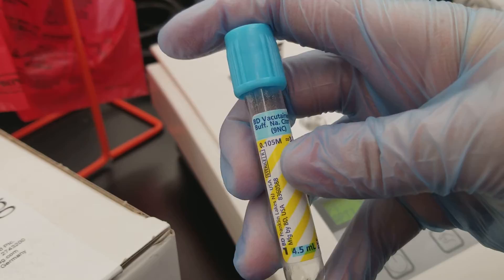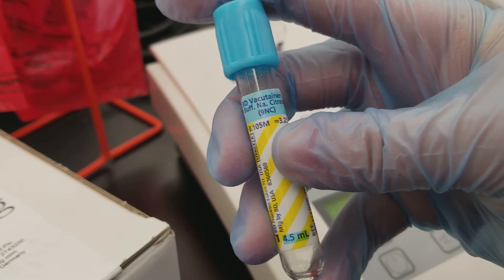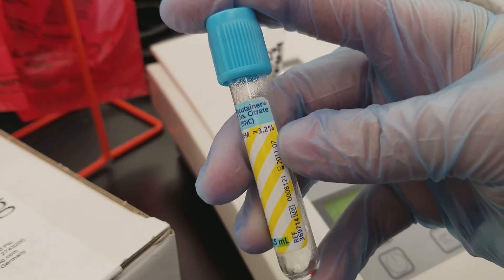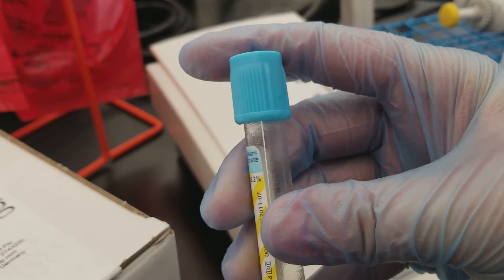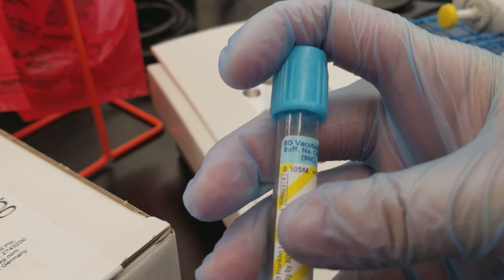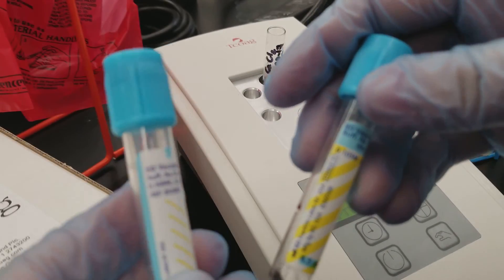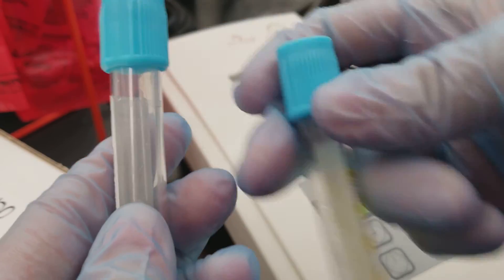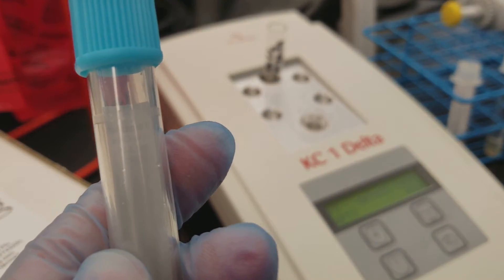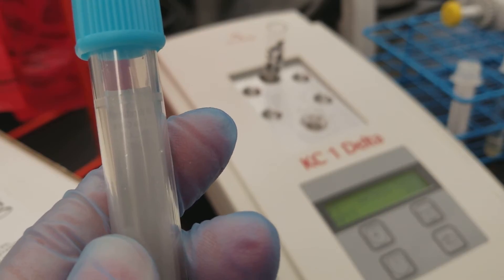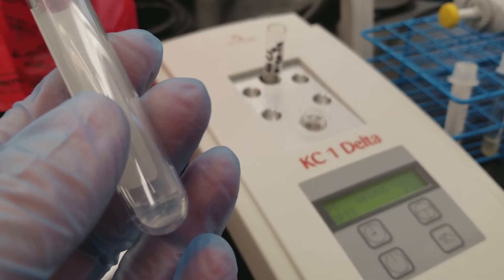If the specimen was not drawn correctly in regard to the amount of whole blood that's in there. So usually there is a fill line on here, and this one doesn't actually look like it has one. It doesn't really look like it has one in the plastic, but this one does. So notice, see there's an etching right there? That's a line, and that's your fill line.